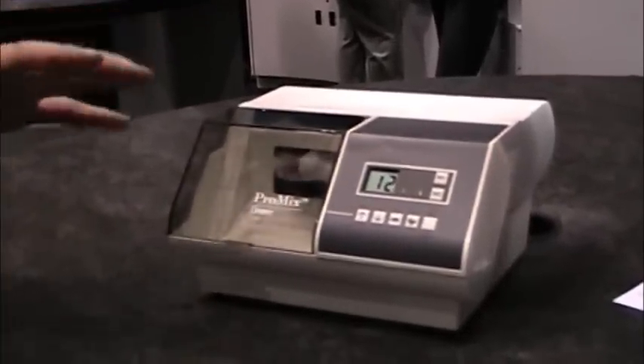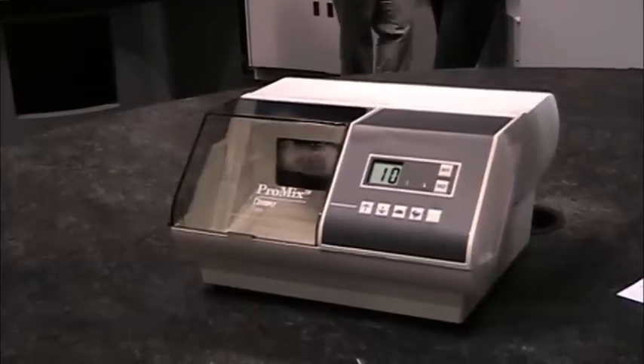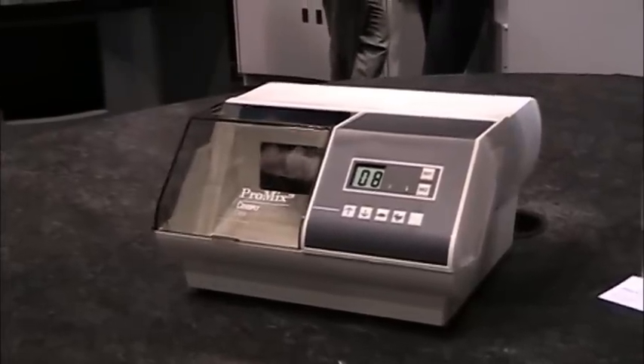Our Chem Fill Rock is available in four different shades: A1, A2, A3, and a contrast white.